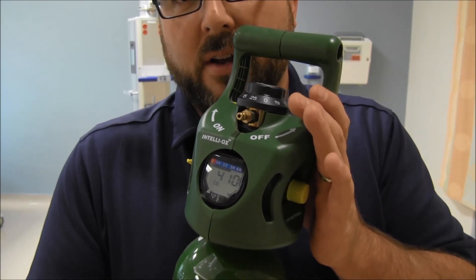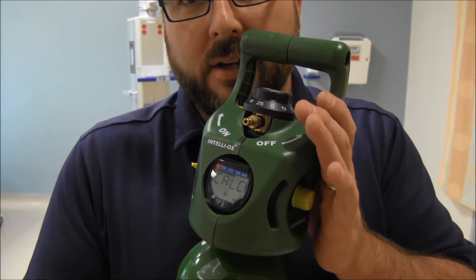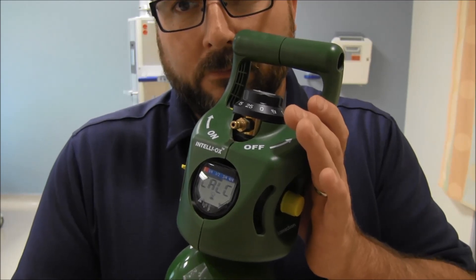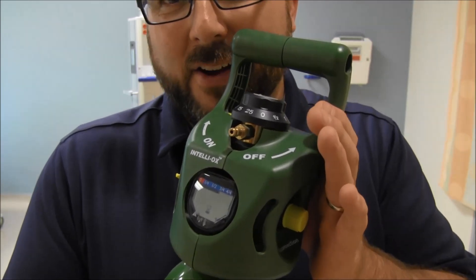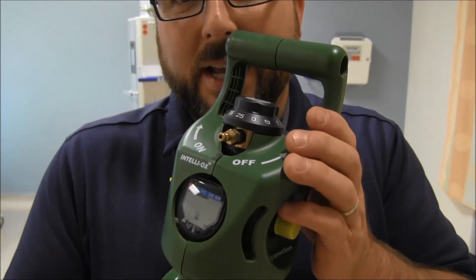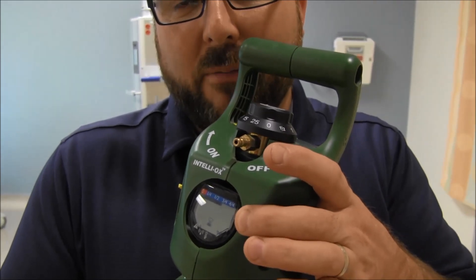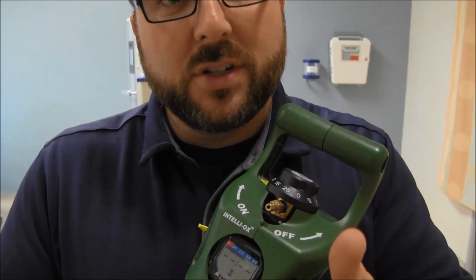I cranked it to 25 liters just to make it deplete quickly. You hear that sound — beep-beep, one long one and one short one — that means you're less than 500 PSI or less than 15 minutes remaining. That is the audible alarm, and you also see a visual alarm: the display is blinking and not showing any time at all. When you're less than 15 minutes you need to get this tank changed. Running at 25 liters uses oxygen really fast.